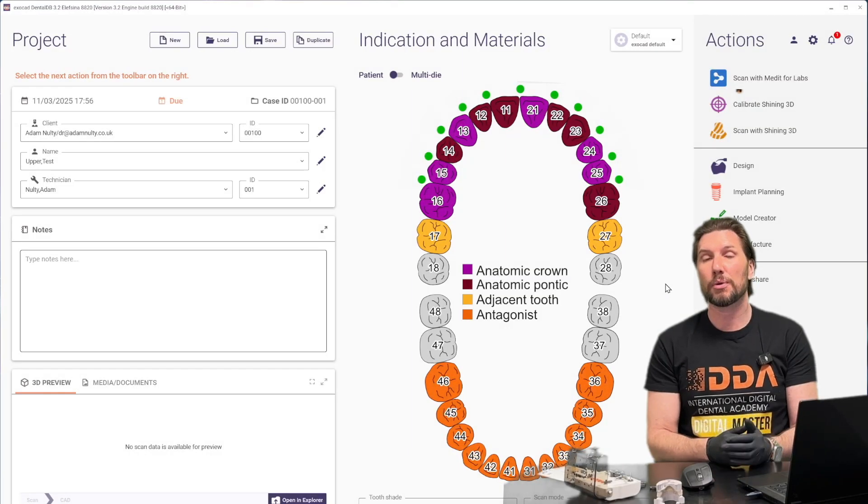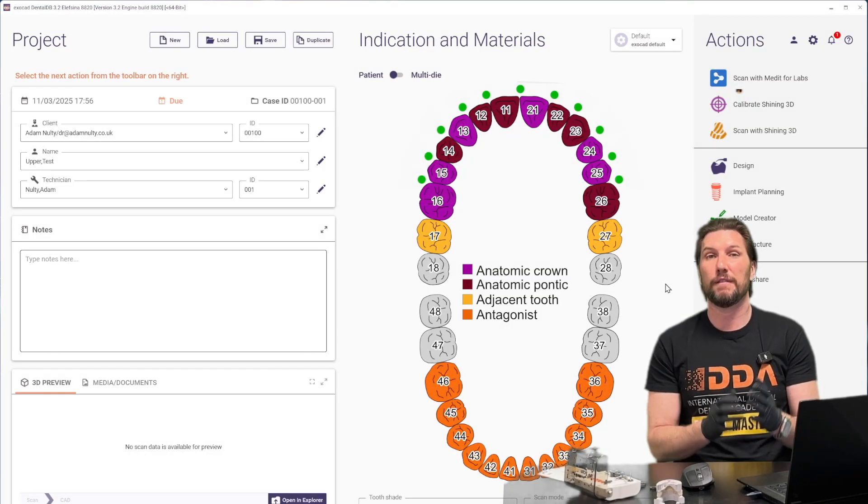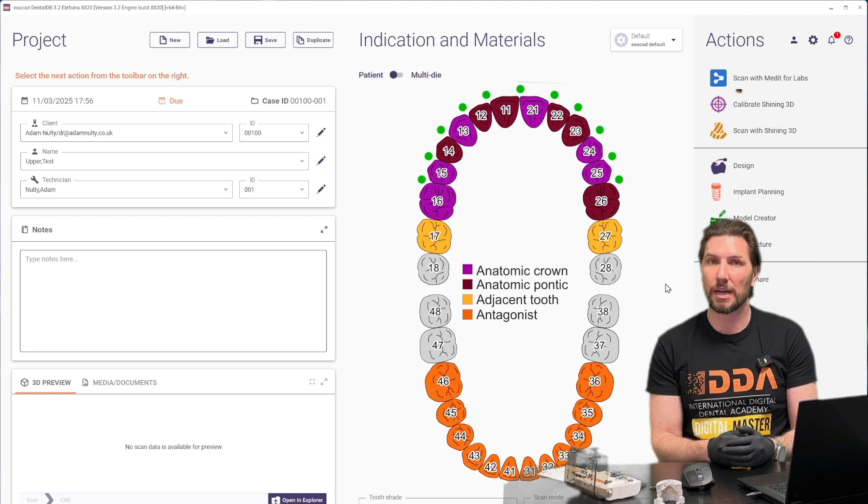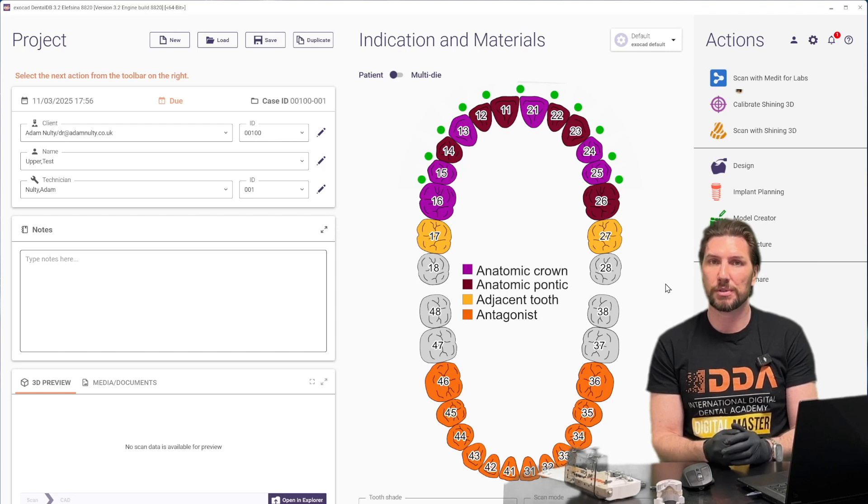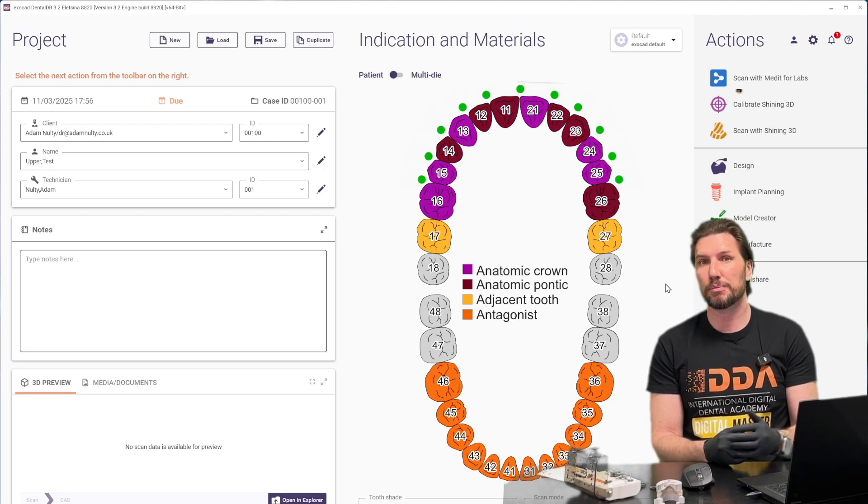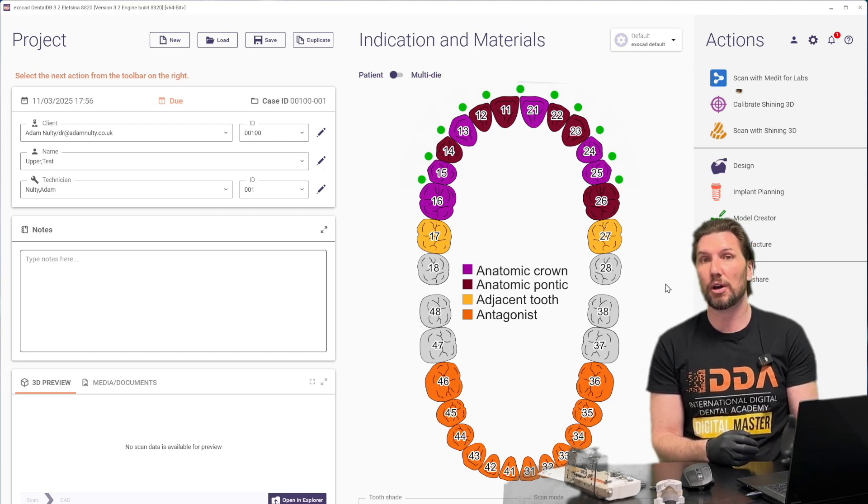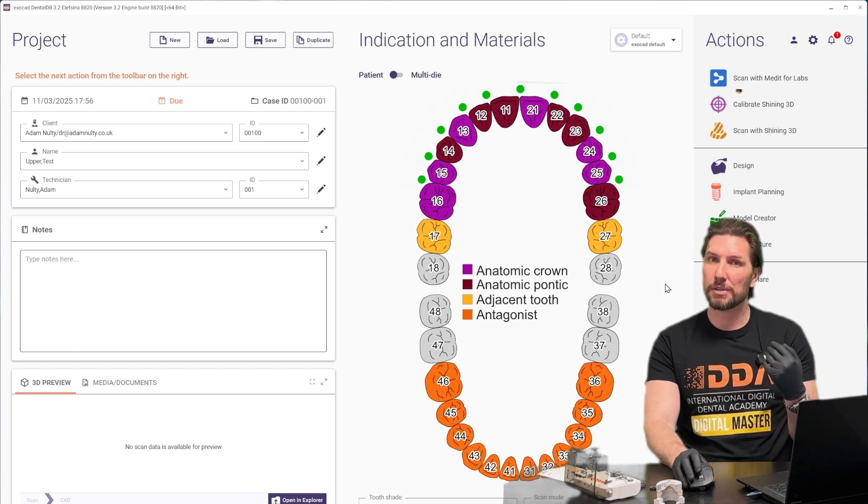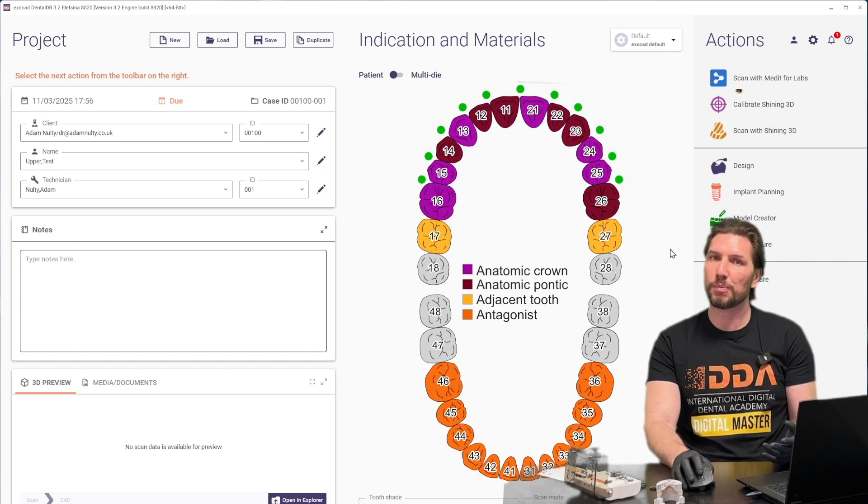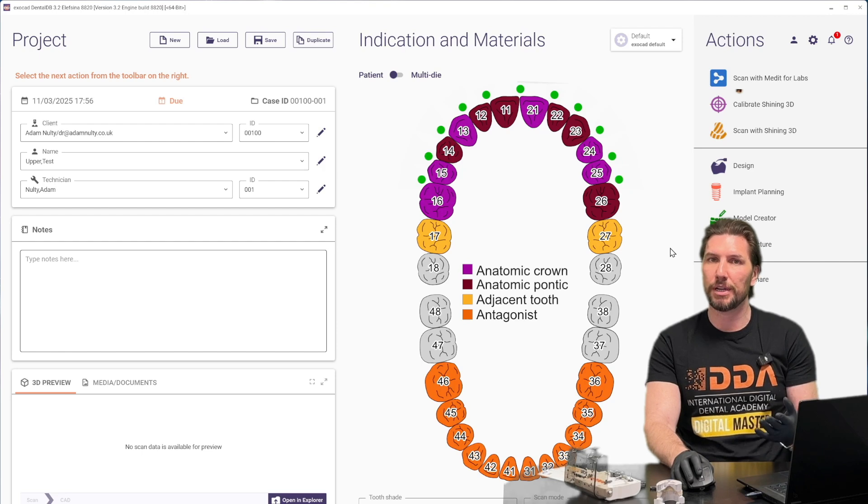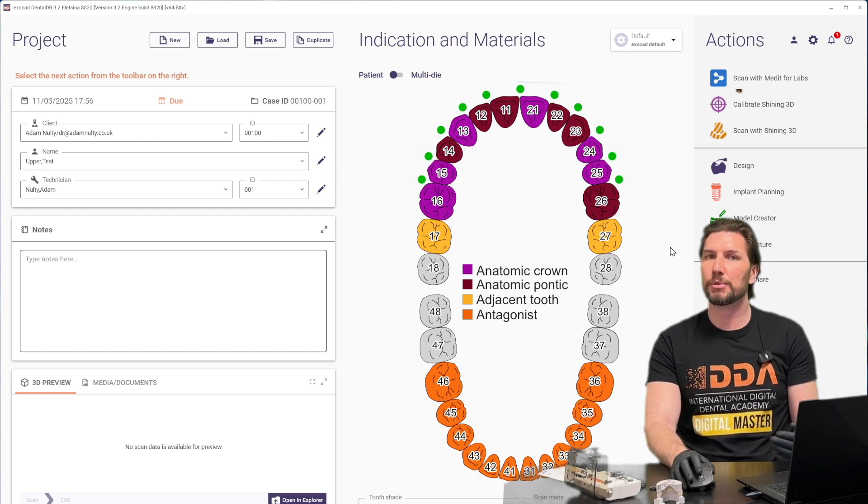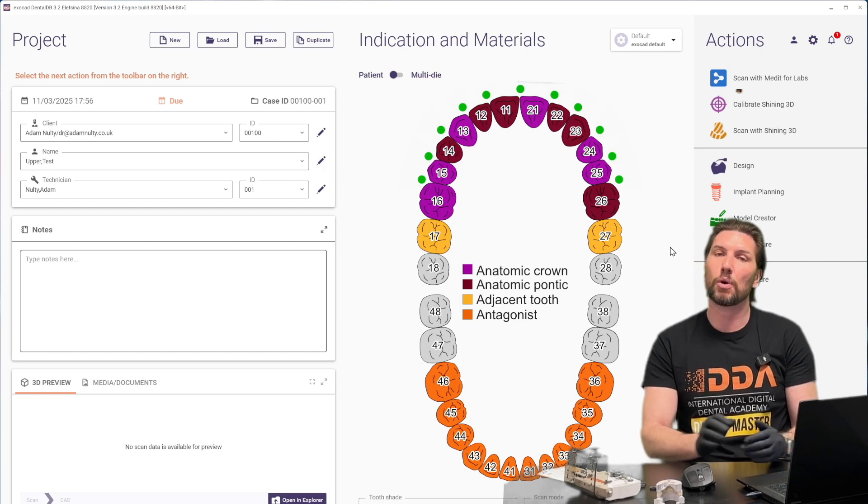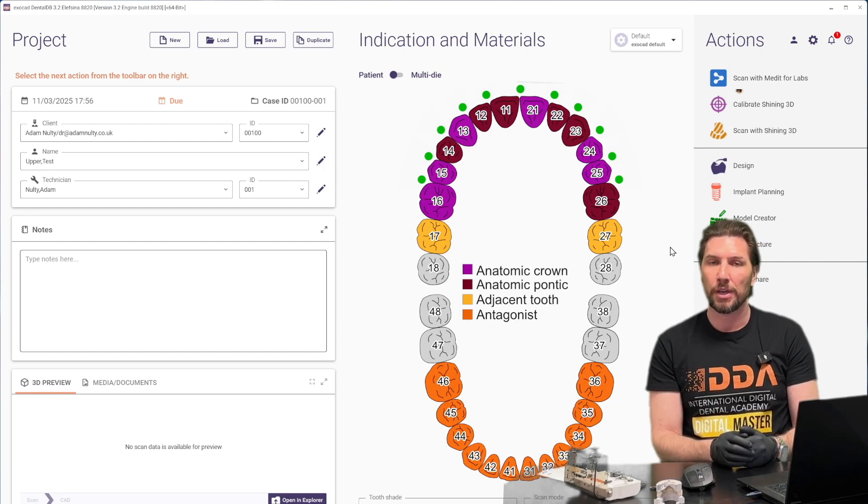Let's have a look at how we would create a very quick and easy prototype provisional prosthesis based on a previous prototype that we've got here. So we want to just do this to be nice and quick. We don't want to spend ages on it. This is just a 3D print and be able to follow along easily watching on a video.